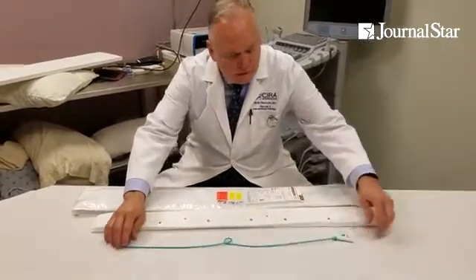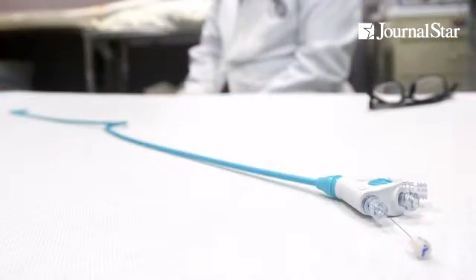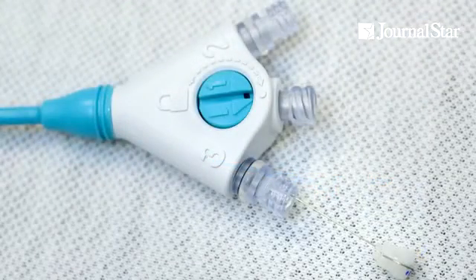We bring a patient in. We put device A in on day one. If we bring them back about three to seven days later, we take that one out, we put device B in — and the ConvertX converts from A to B in under 30 seconds. No anesthesia, no local anesthesia, no sedation, no antibiotic. They don't have to bring a caregiver with them. It's really nice.